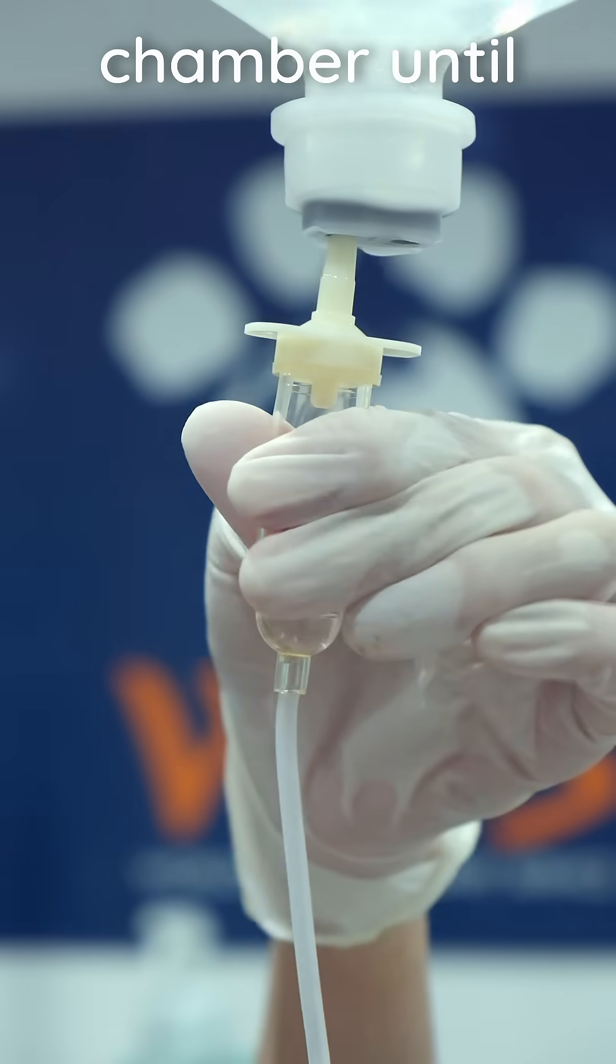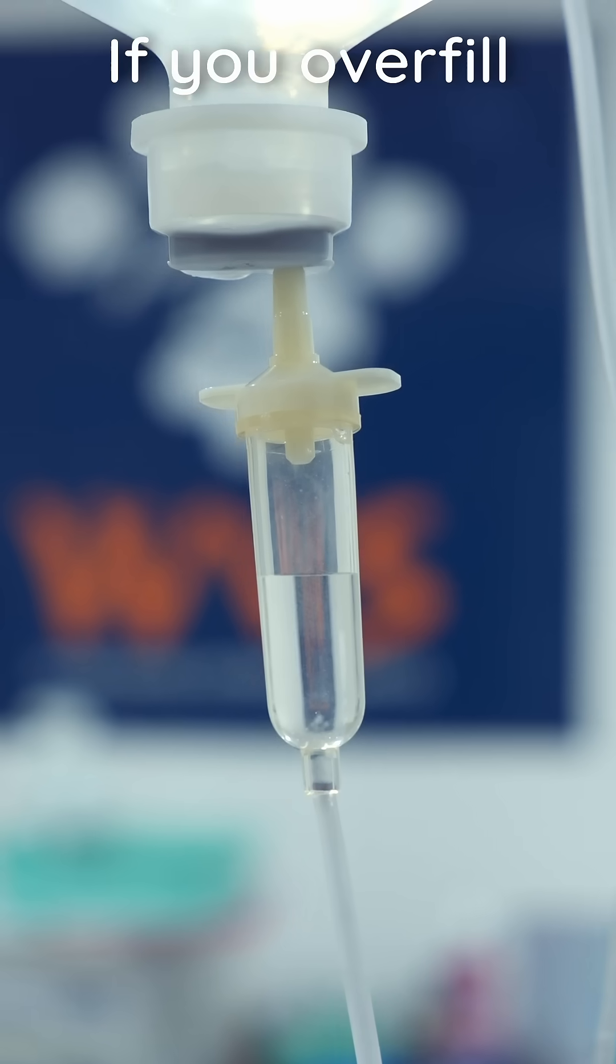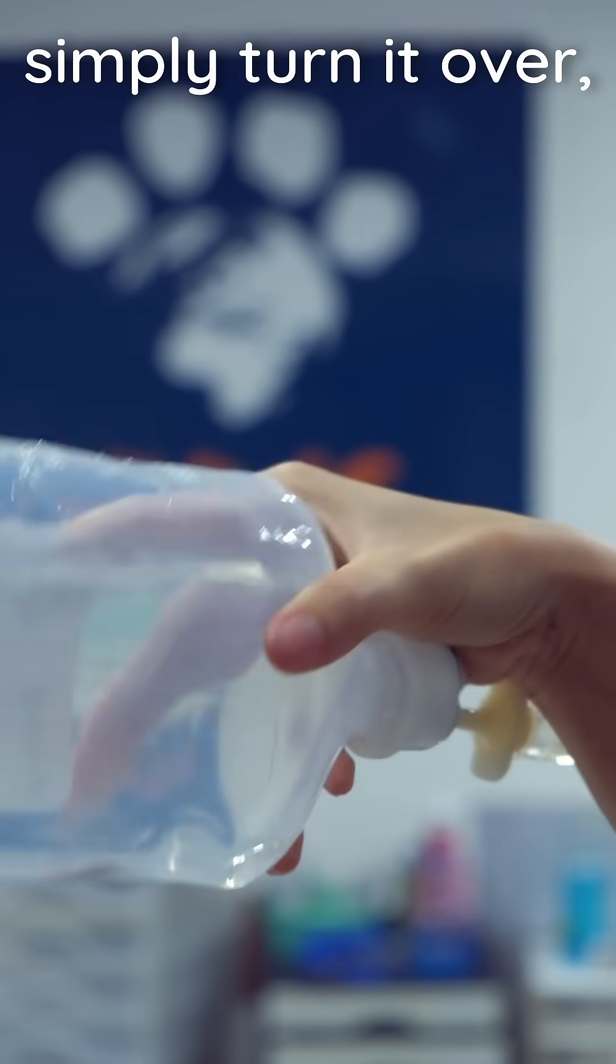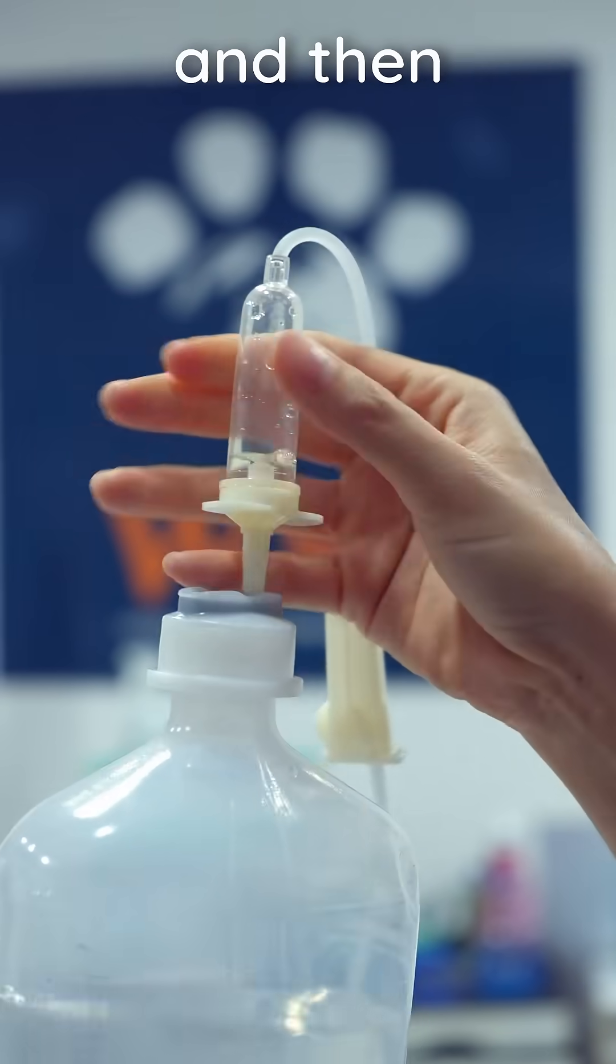Squeeze and release the chamber until it's half full. If you overfill the chamber, simply turn it over, squeeze it to remove fluid, and then fill it again.